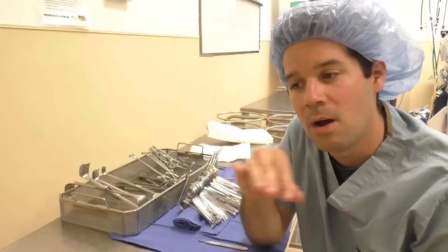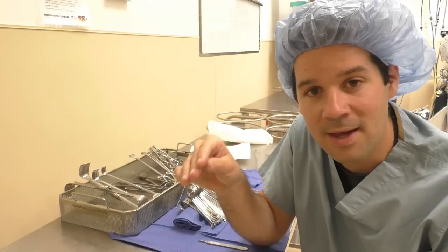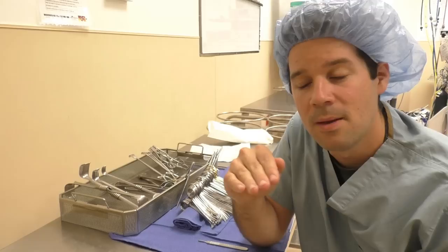When talking about anticipation in the OR, it really breaks down into two things. The first is a general knowledge of anticipation, and that type of anticipation can be used across the board on all specialties, on all cases — knowing when you need to use a knife, then a bovie, then a scissor, then ties and stuff like that. These are all general things you can use across the board. But there's also a separate type of anticipation.